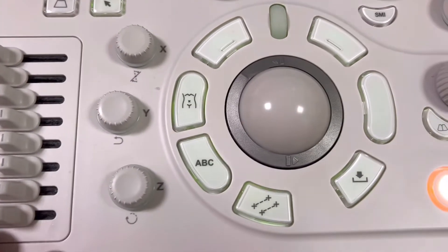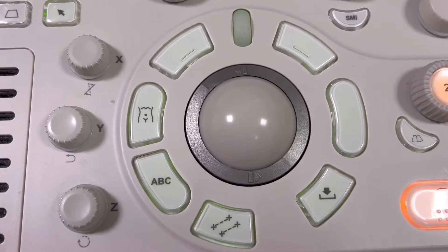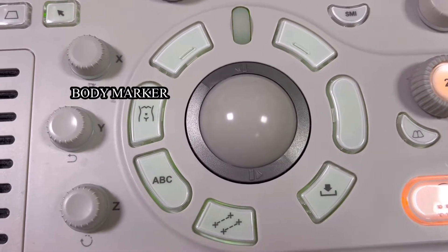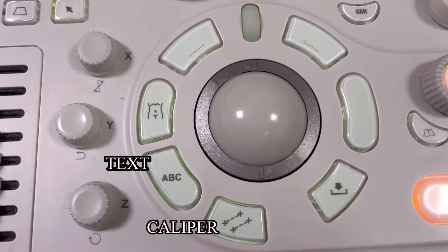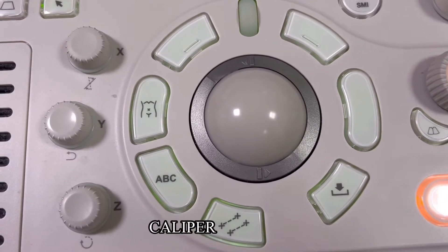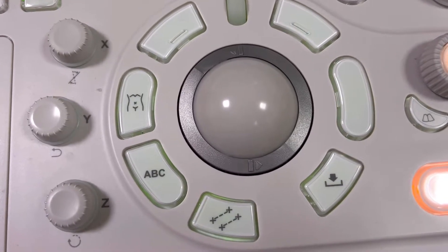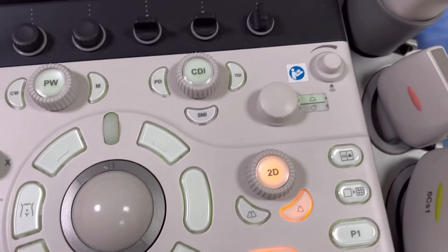And these are the common buttons that we use. We have here the button for body marker, text or annotation, the caliper for measuring structures, set, and the XYZ used for rotating your image — especially if you are doing 4D scans.